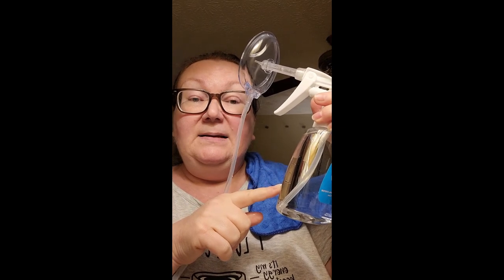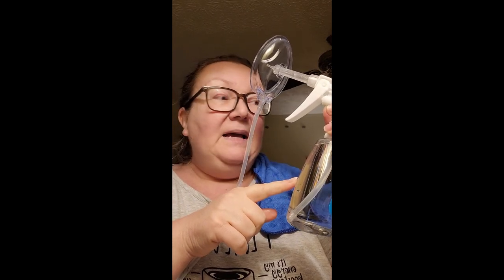In here I've got half hydrogen peroxide and half — I used bottled spring water. I don't want to use tap water, at least here, because in the morning when you first turn the tap water on it's discolored, a little bit muddy. Anyway, you do what you want to do. I used bottled spring water and it recommends lukewarm water. So I heated up the water in the microwave for about 15 seconds — it's not hot, but it's warm.